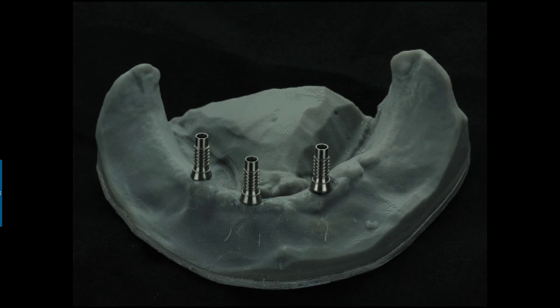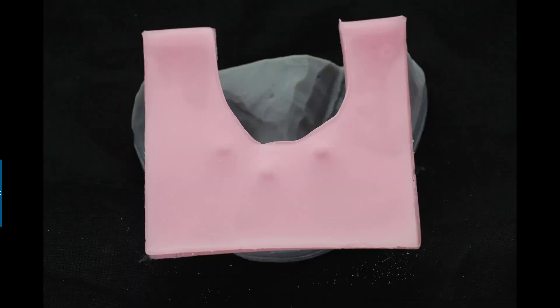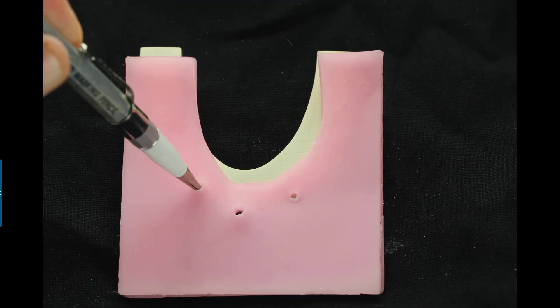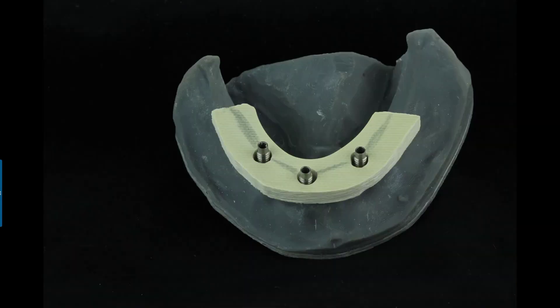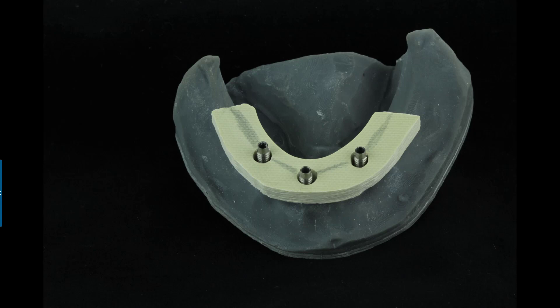If you took an example like this, there's many ways that you can use this. One would be if you did a restoration where you had some temporary cylinders sticking up out of that, you can mark those cylinders by taking a piece of pink baseplate wax doubled over, just press it into the top of this, marking where your cylinder locations are, and then transfer that over and lay it on your Trilor bar. You can mark the locations of those cylinders. This enables you to just punch some small holes in there with a handpiece, set it over, and then you can do a pickup of this bar with cement, with acrylic, with composite, whatever your material of choice would be.